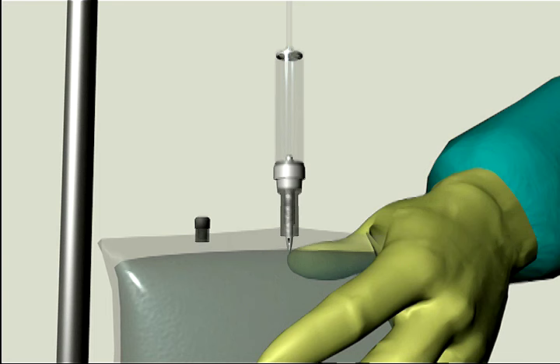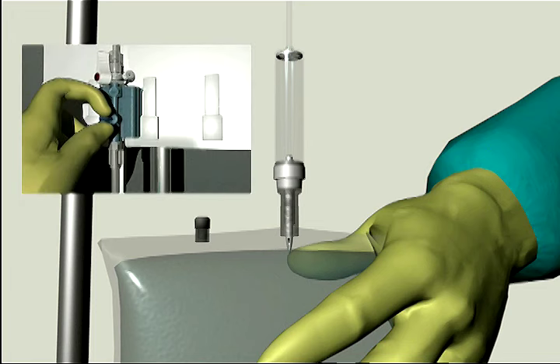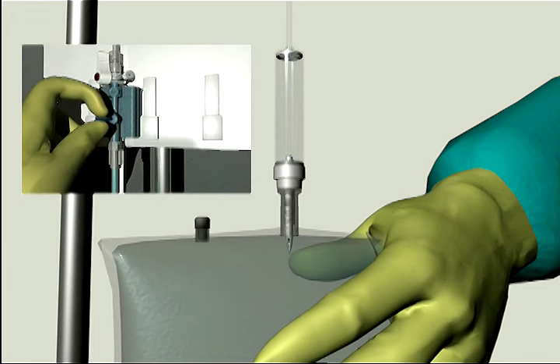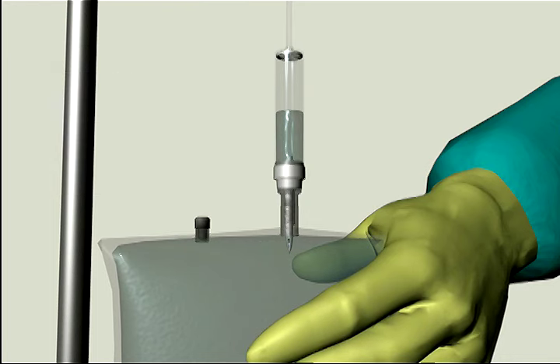While keeping the IV bag inverted, gently squeeze air out of the bag with one hand while pulling the snap tab flush device with the other hand until air is emptied from the IV bag and the drip chamber is filled at least halfway per institutional policy.